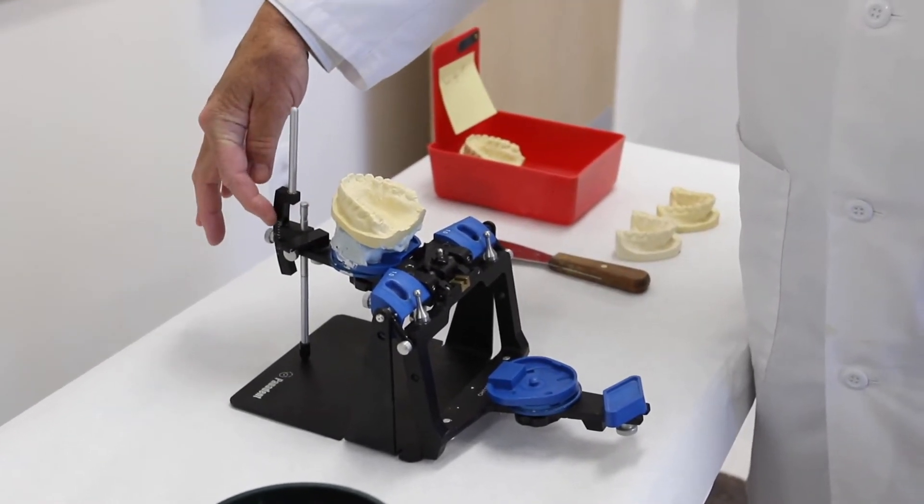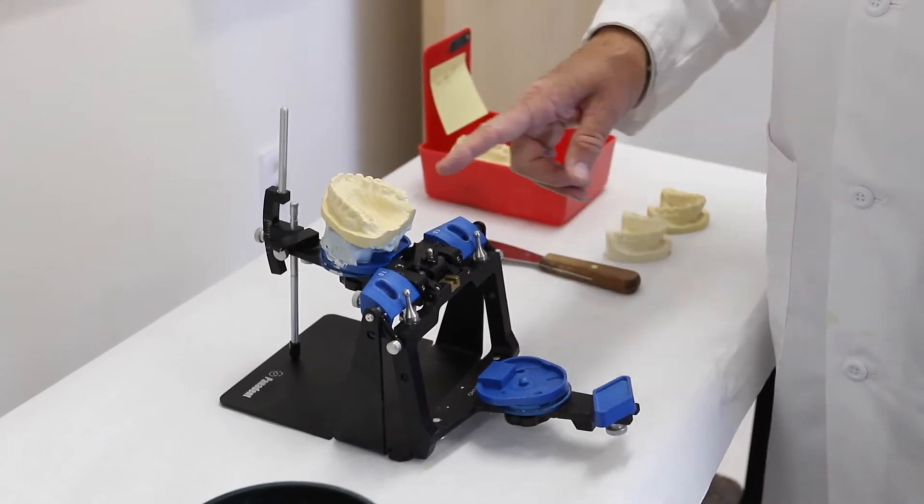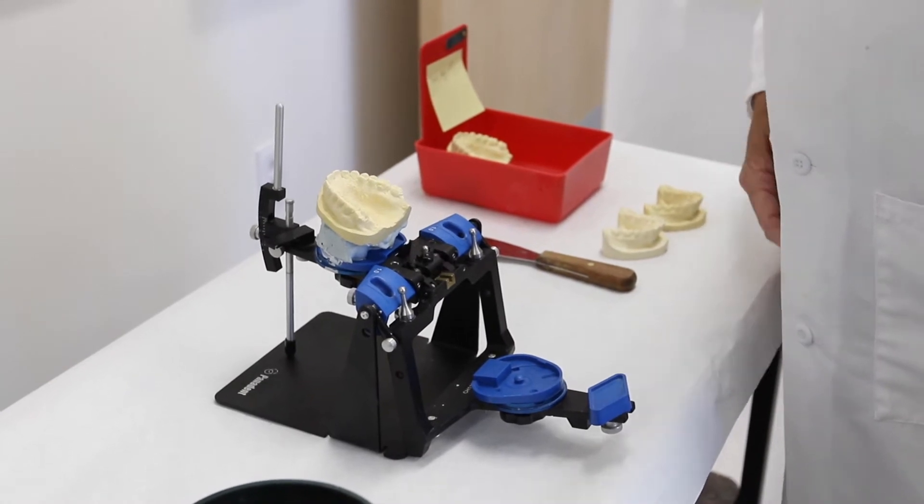So that now you have this configuration for your setup. This is set to a plus two, this has been mounted and the stone is hardened, and we're ready now to attach the mandibular model to the maxillary model.